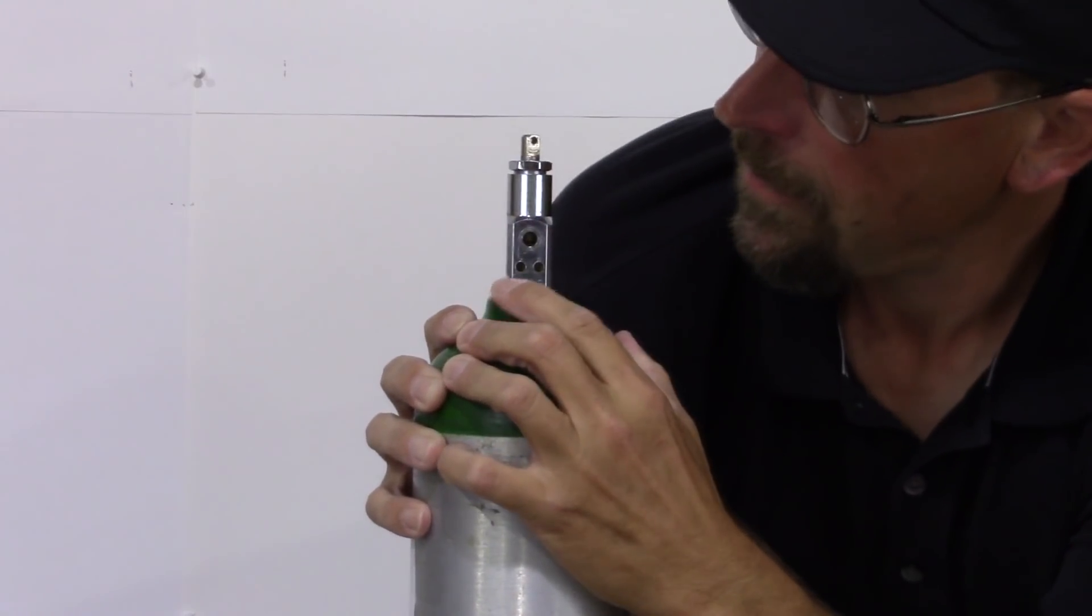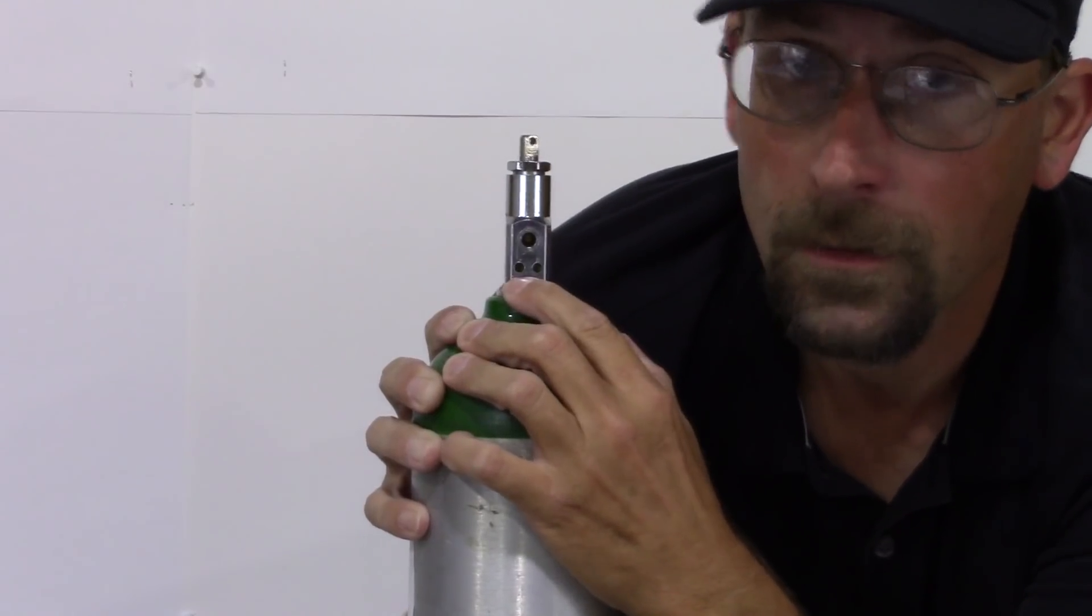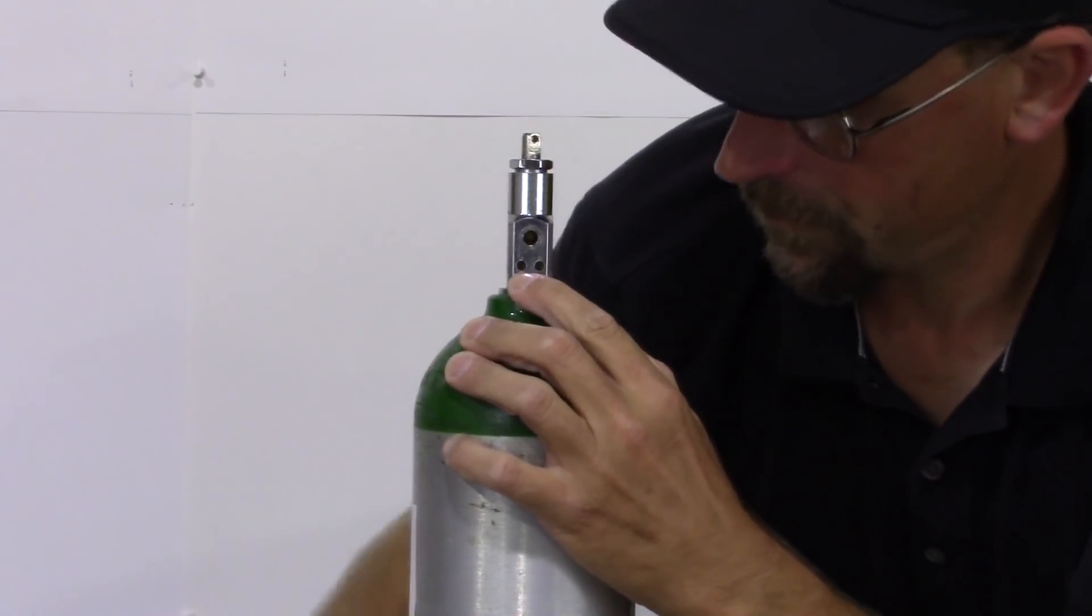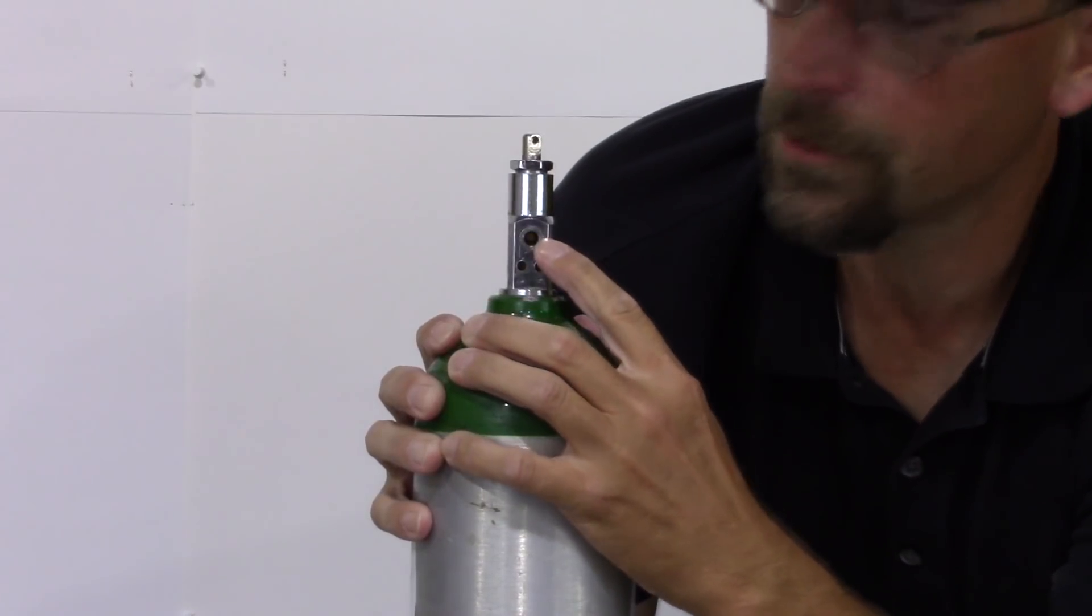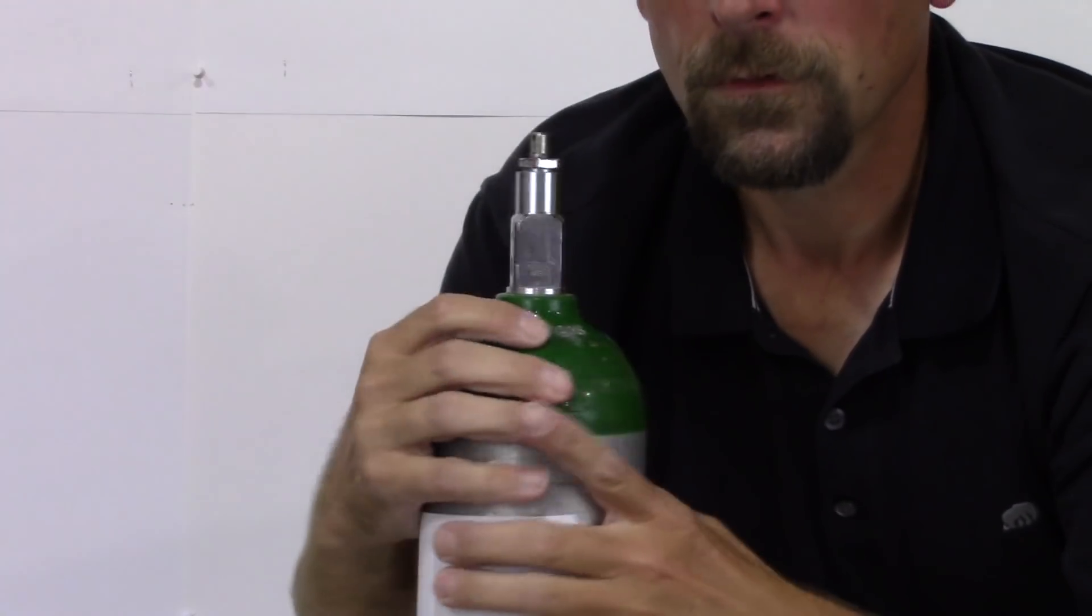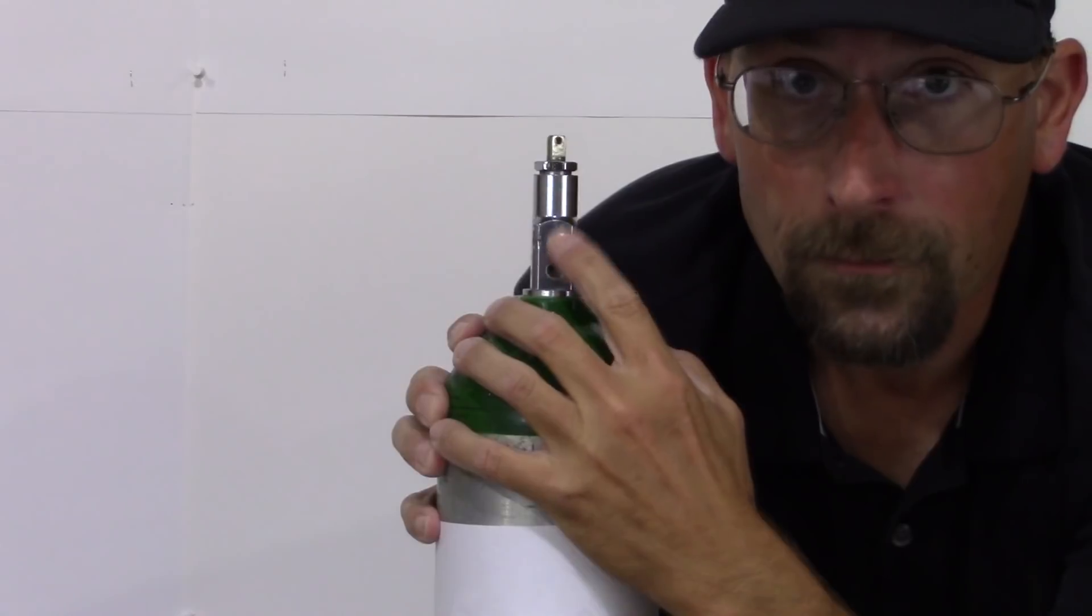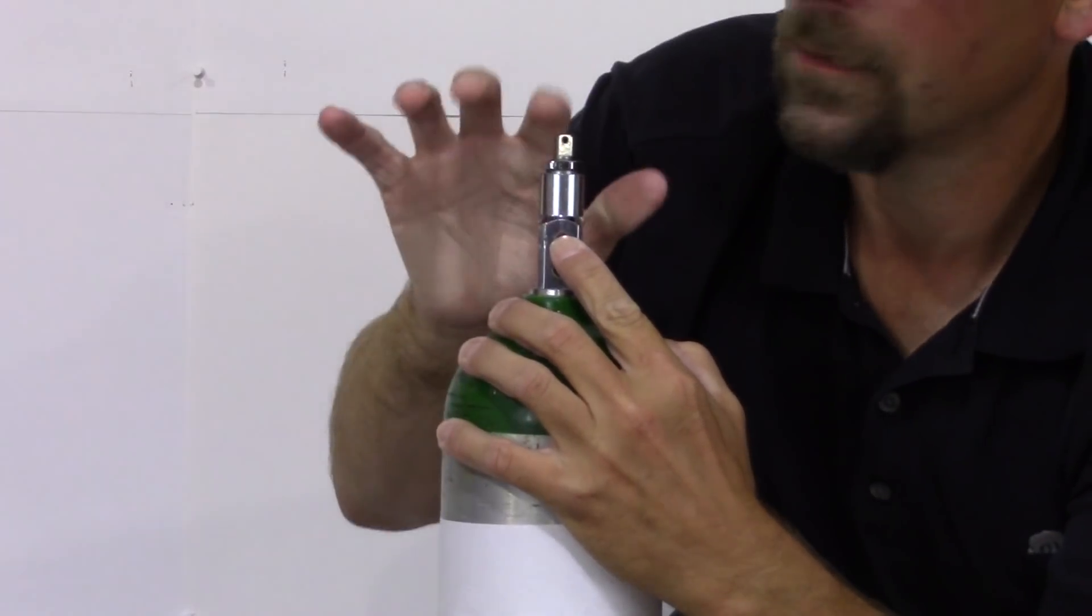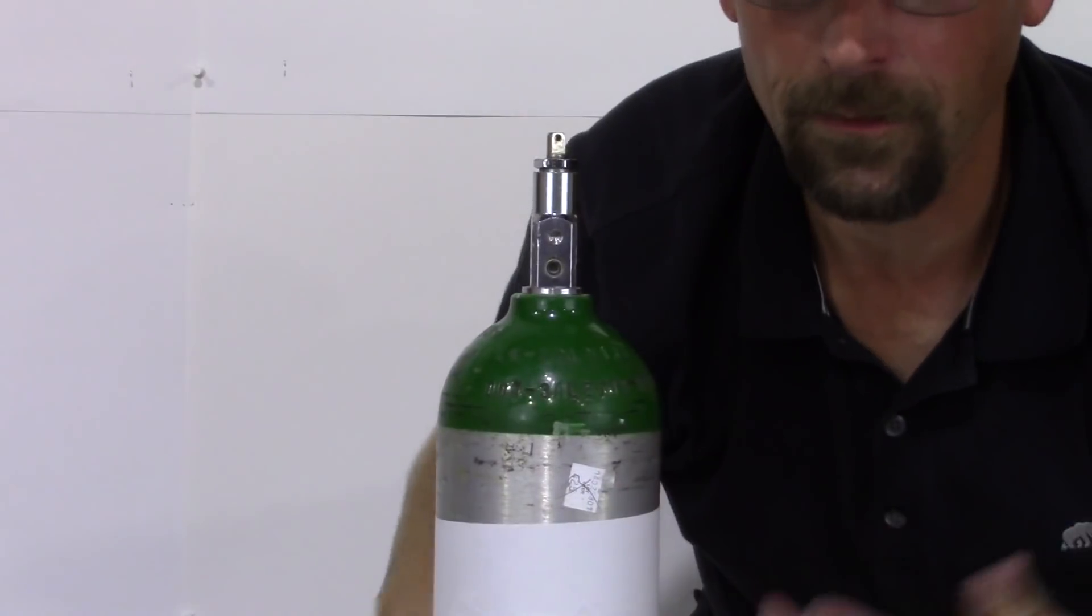Essentially, there's two little holes right here where the pins will go through, and there's a big hole right here where the oxygen comes out and the washer is fixed to. On the other side, there's a little divot here which the handle will fit into. And then this part on the top, which we're going to open up with the wrench to let the air out.